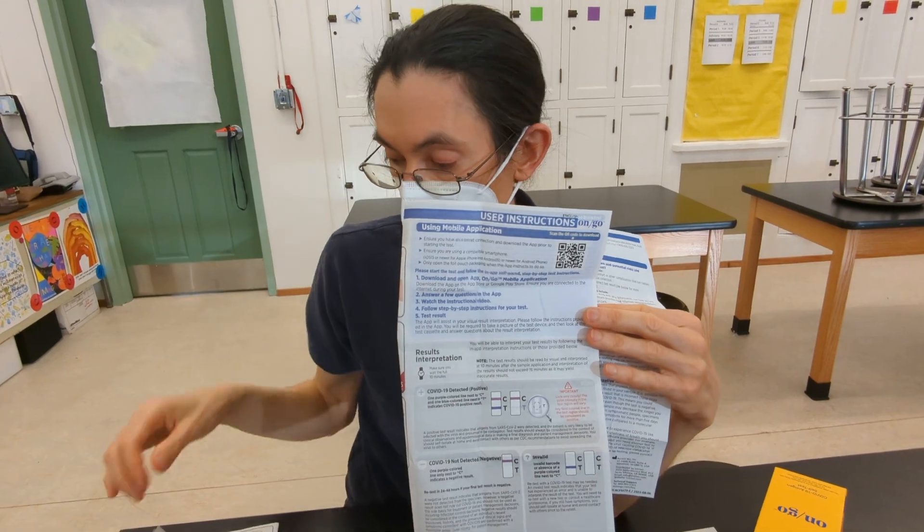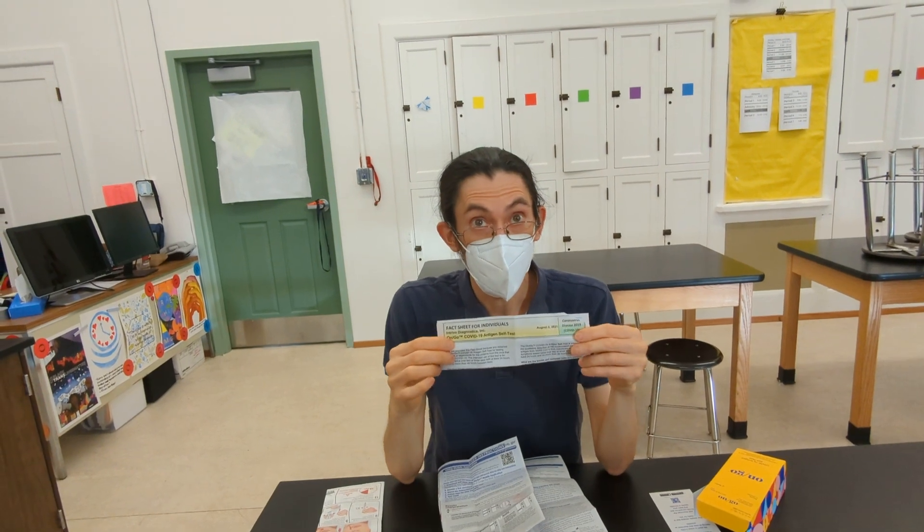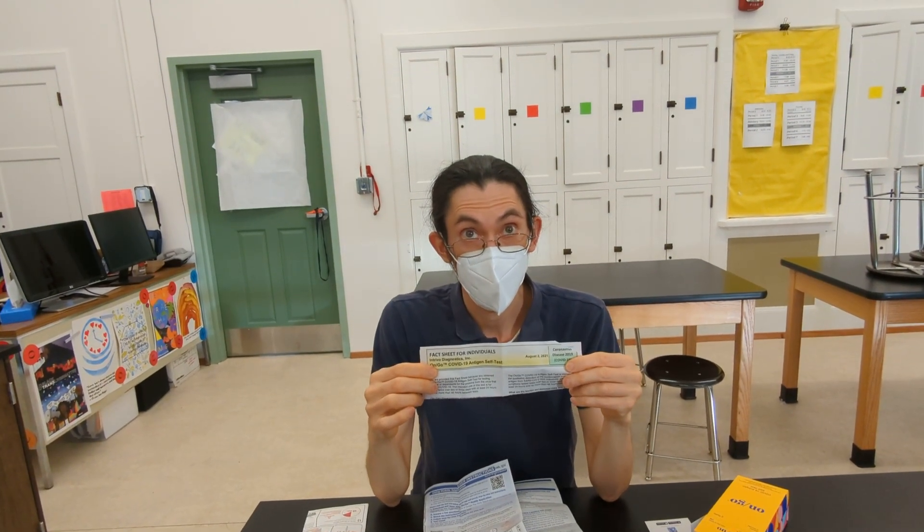So this is the English. There's also Spanish. And then there's also more information, a fact sheet about the test and what to do with the results as well. And that's it.